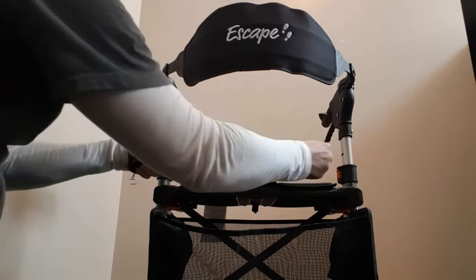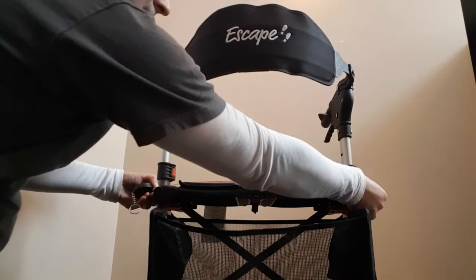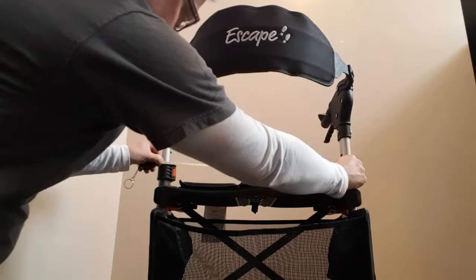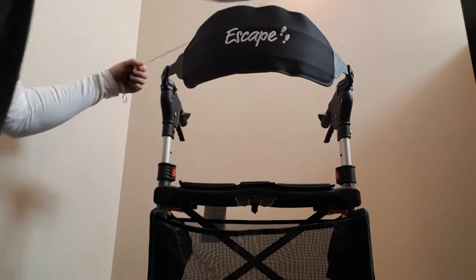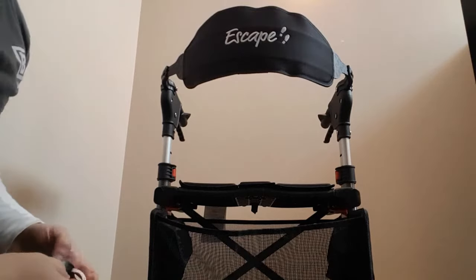We've got a 19 inch seating area from the inside to the inside seat measurement, and then we clear about 18 and a half inches in between the levers that do the height adjustment, and then across the top inside the back you're looking at 20 inches up there.